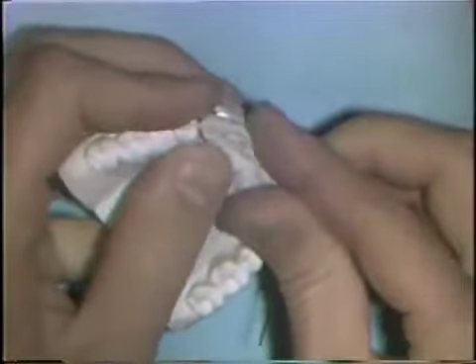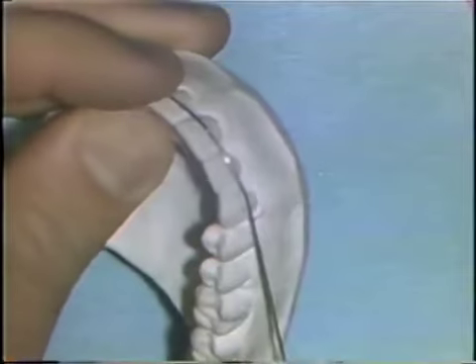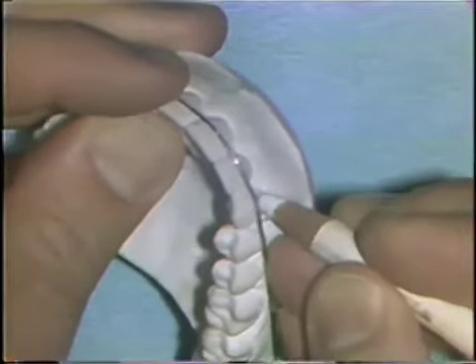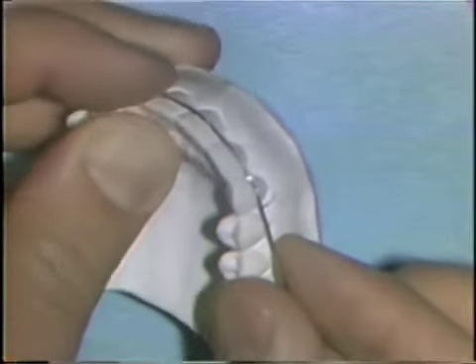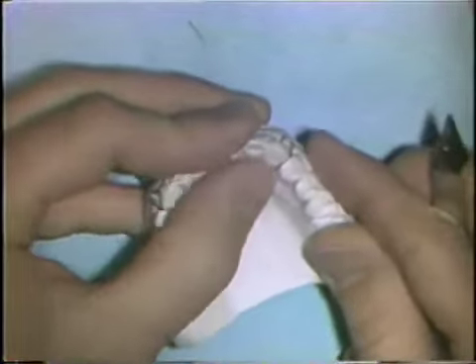One half of the labial wire has been adapted. To make the second loop, you mark the wire again in the middle of the cuspid mesiodistally and proceed in the same fashion to make the second loop. The second loop has been completely bent now and the extension into the acrylic has been formed. The wire is completed, adapted as it should be, and it's ready for waxing to the work model for placement of acrylic.